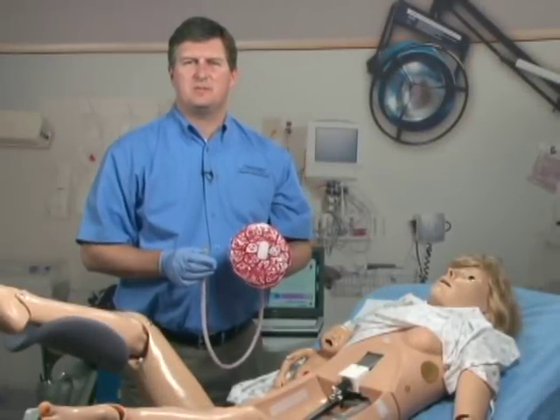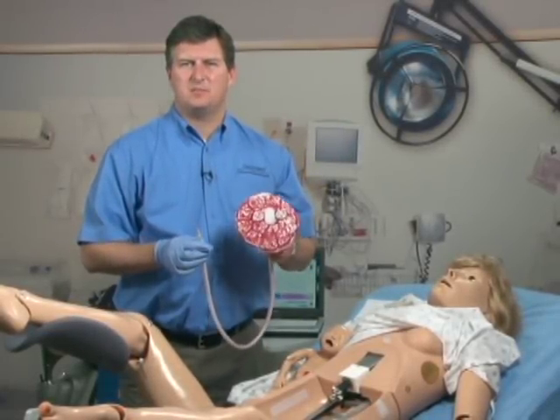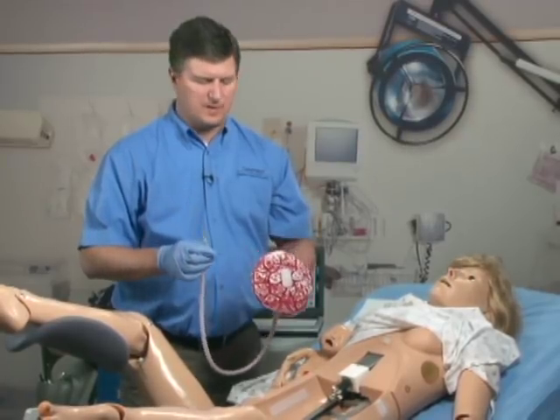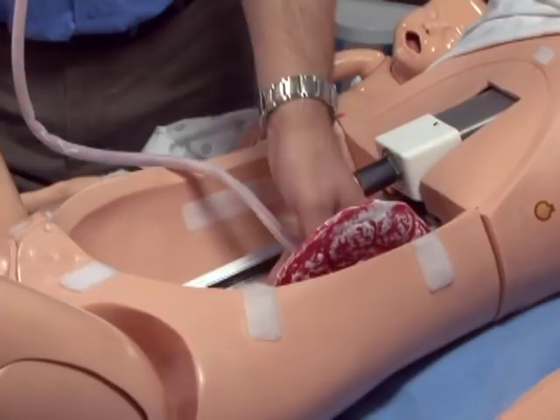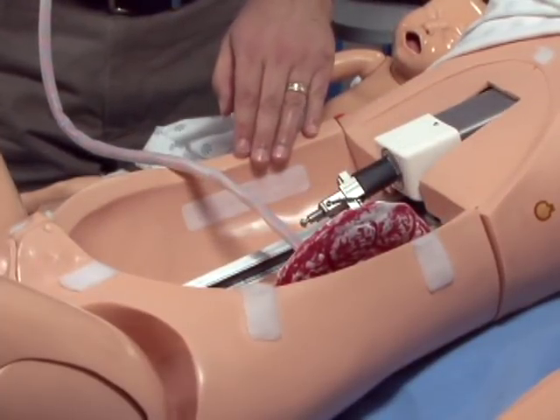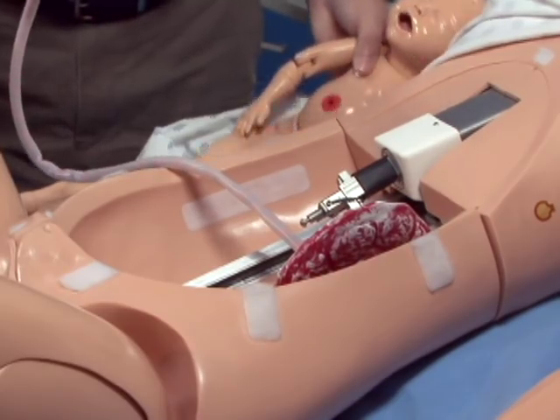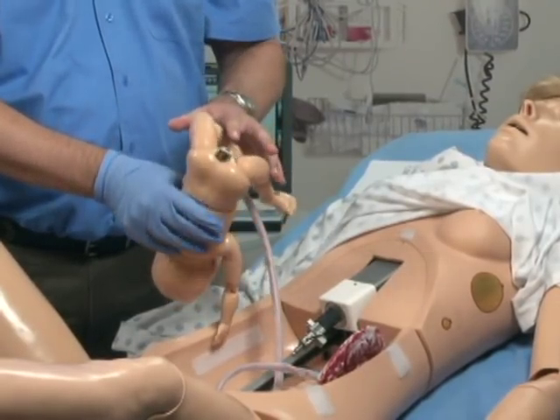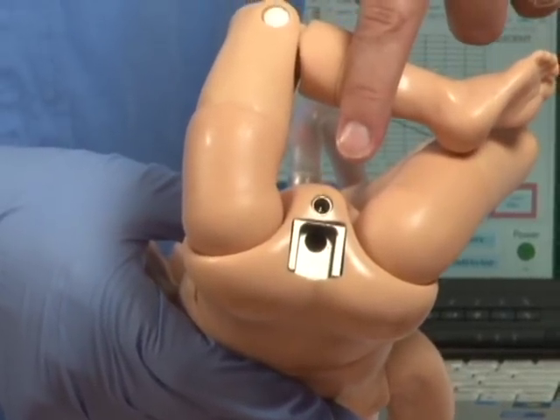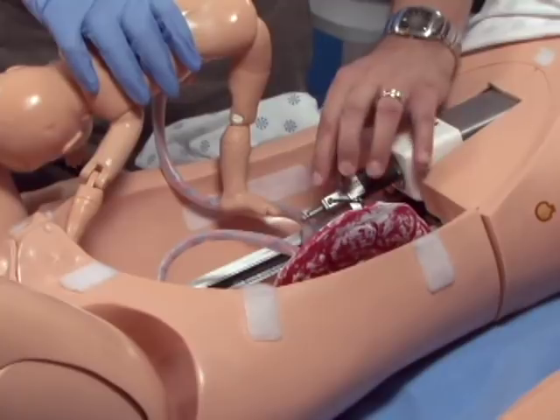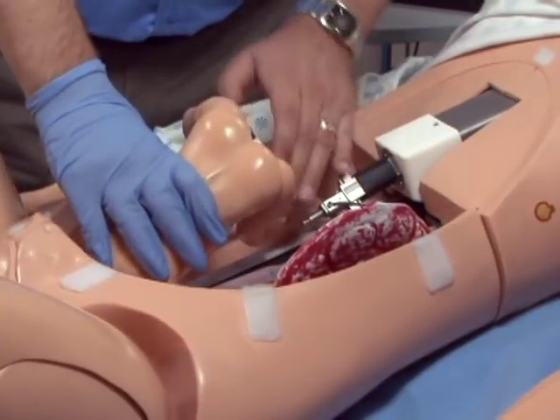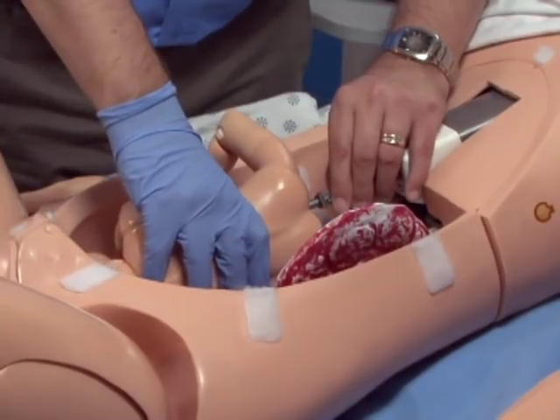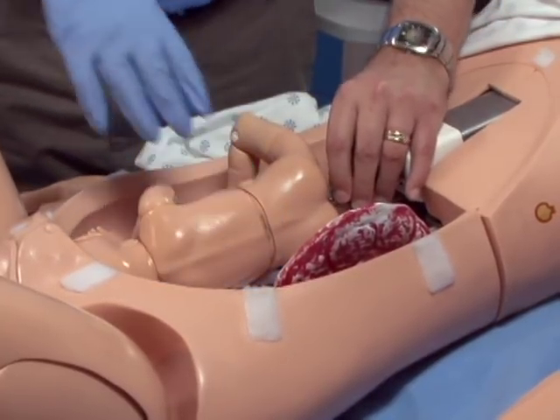Before we insert the baby onto the mechanism, we must attach the placenta and the umbilical cord. The placenta can be attached to either side of the lower torso via a Velcro strap. Turn the baby over and you will notice two openings. These match up to the two pegs on the motor mechanism. Insert the head down into the birth canal, align the pins to the holes and push up. The baby is now attached.